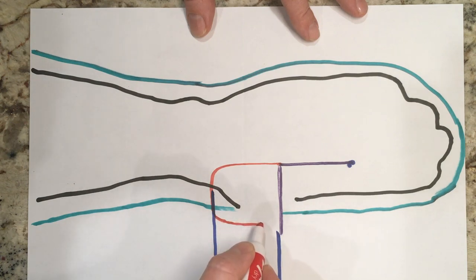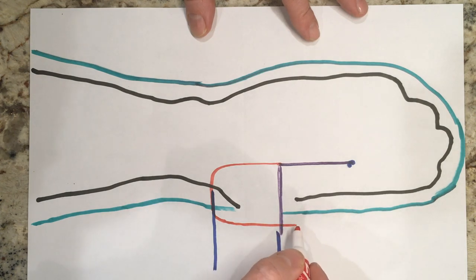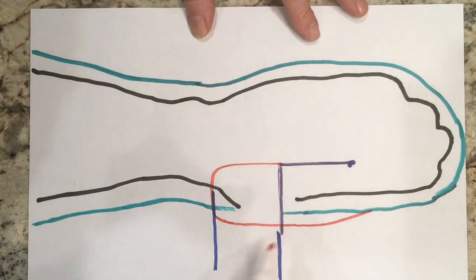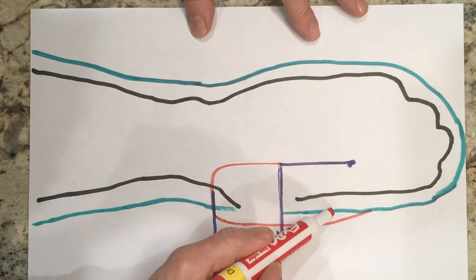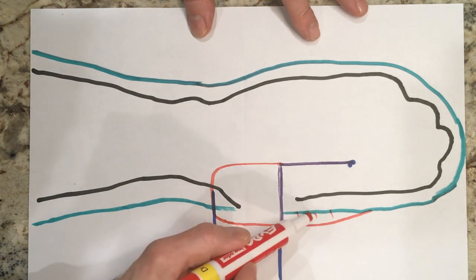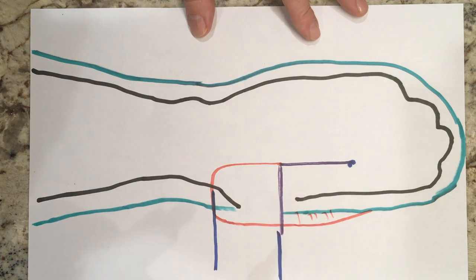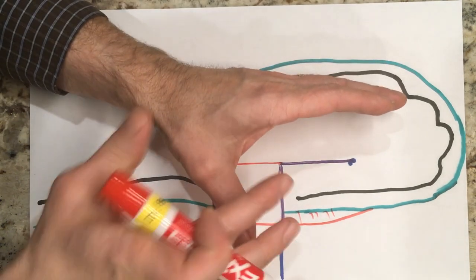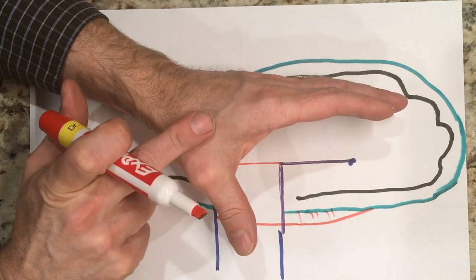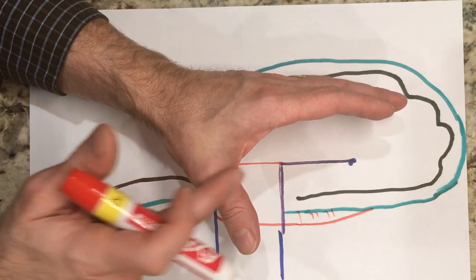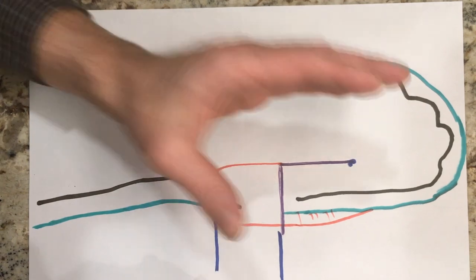And then you come up here, and this will eventually come over and join the rest of the orthosis up around the fingers here. You do want to leave yourself some extra room in here because that will become part of the orthosis that actually ends up wrapping around the radial side of the hand and the radial side of the web space to give it some extra strength.